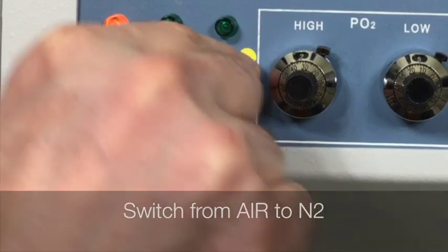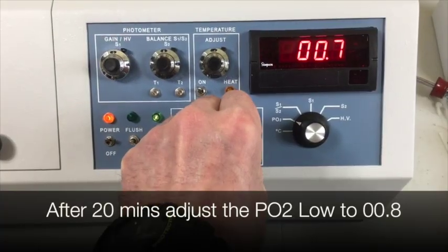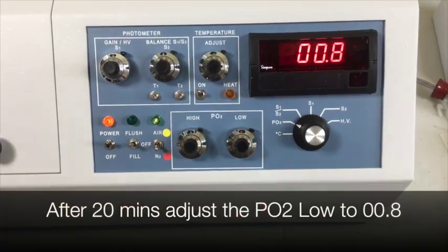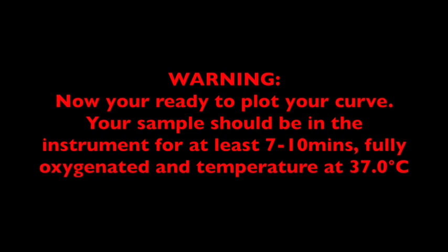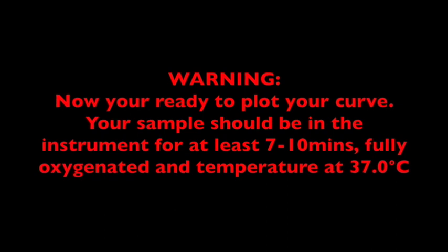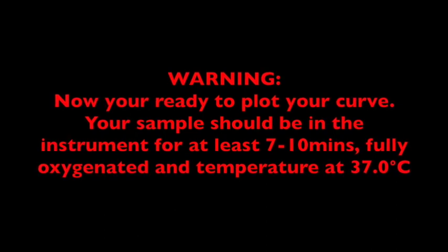Switch from air to N2. After 20 minutes, adjust the PO2 low to 00.8. Now you're ready to plot your curve. Your sample should be in the instrument for at least 7 to 10 minutes, fully oxygenated, and the temperature should be at 37 degrees.